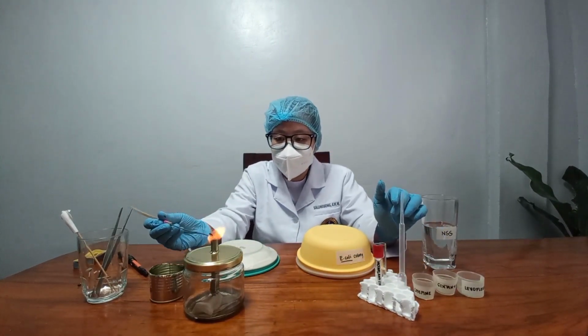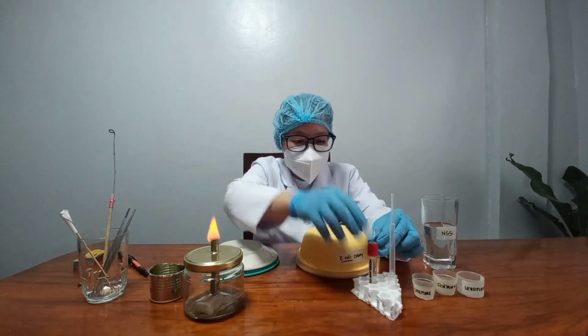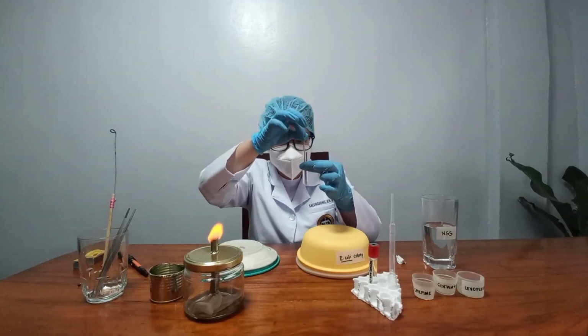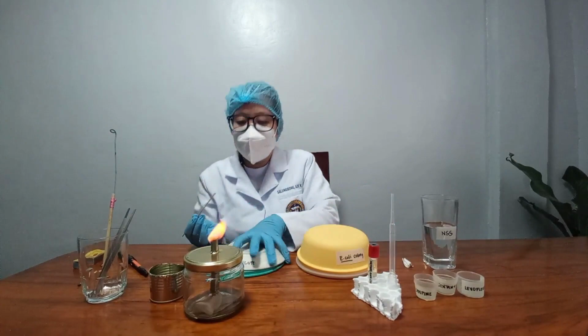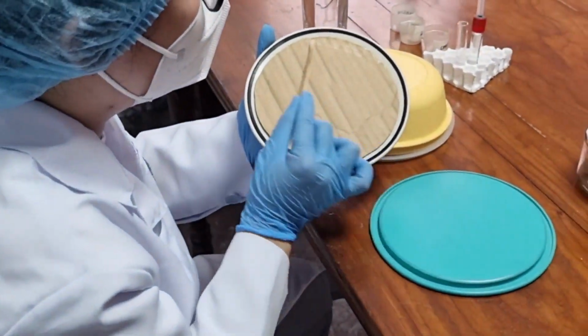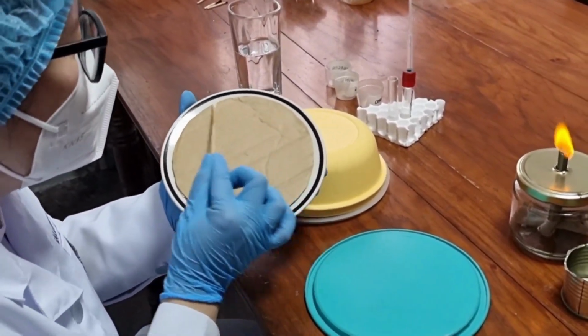After preparing the bacterial suspension, compare it with the McFarland standard to check the suspension's turbidity. Once set, dip the cotton swab into the suspension. Then, perform the 3+1 lawn streaking technique on the MH plate.